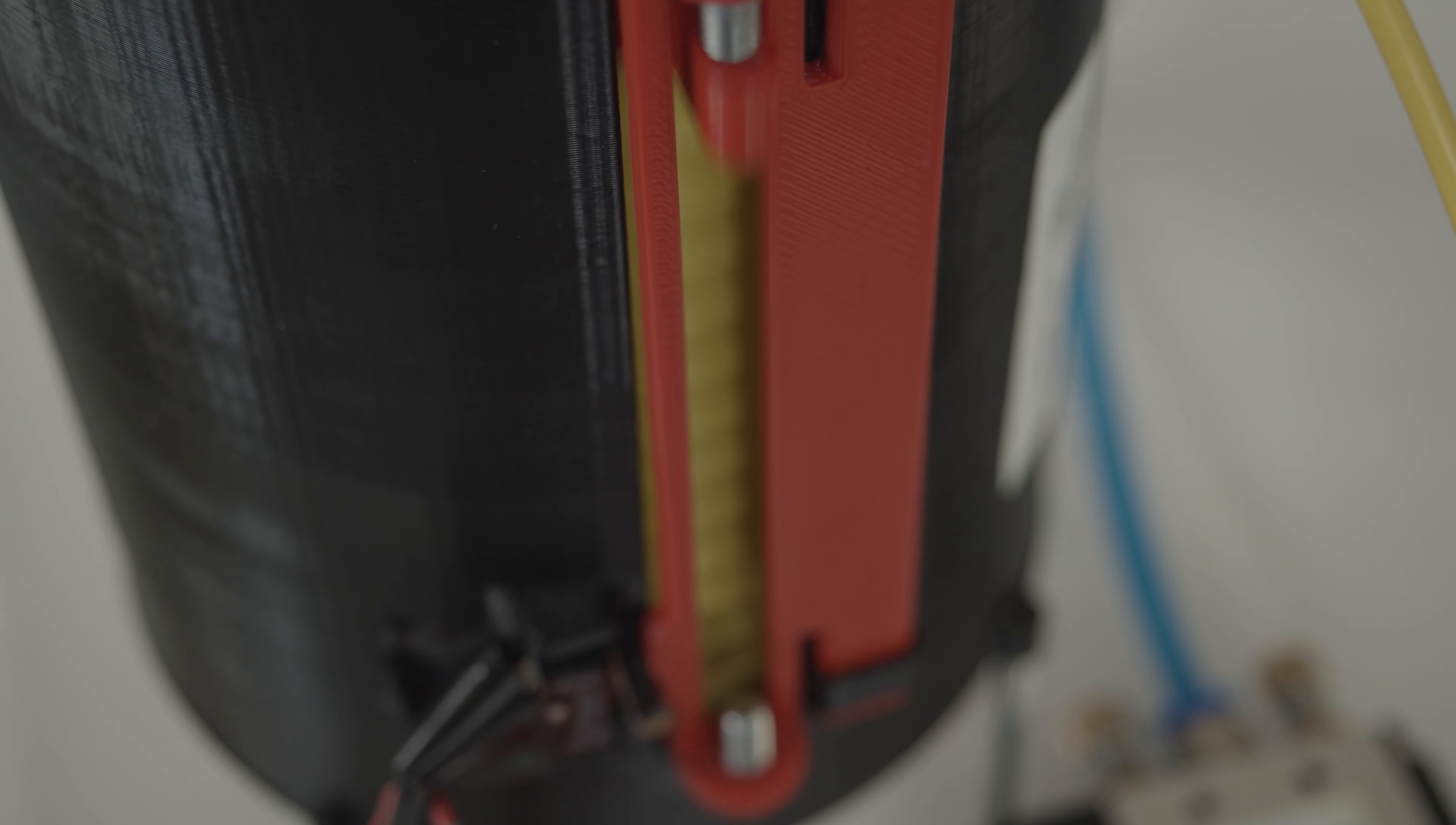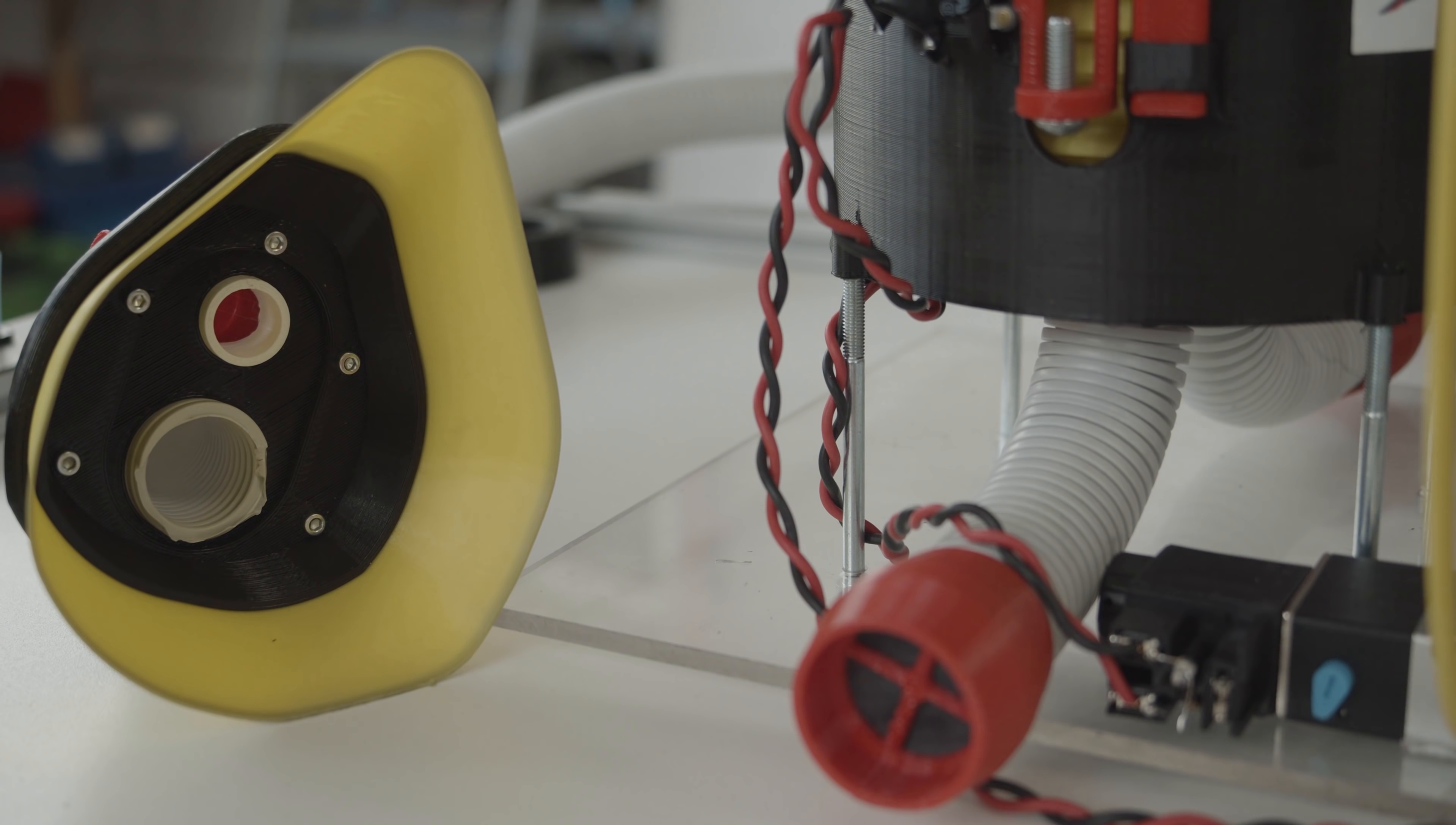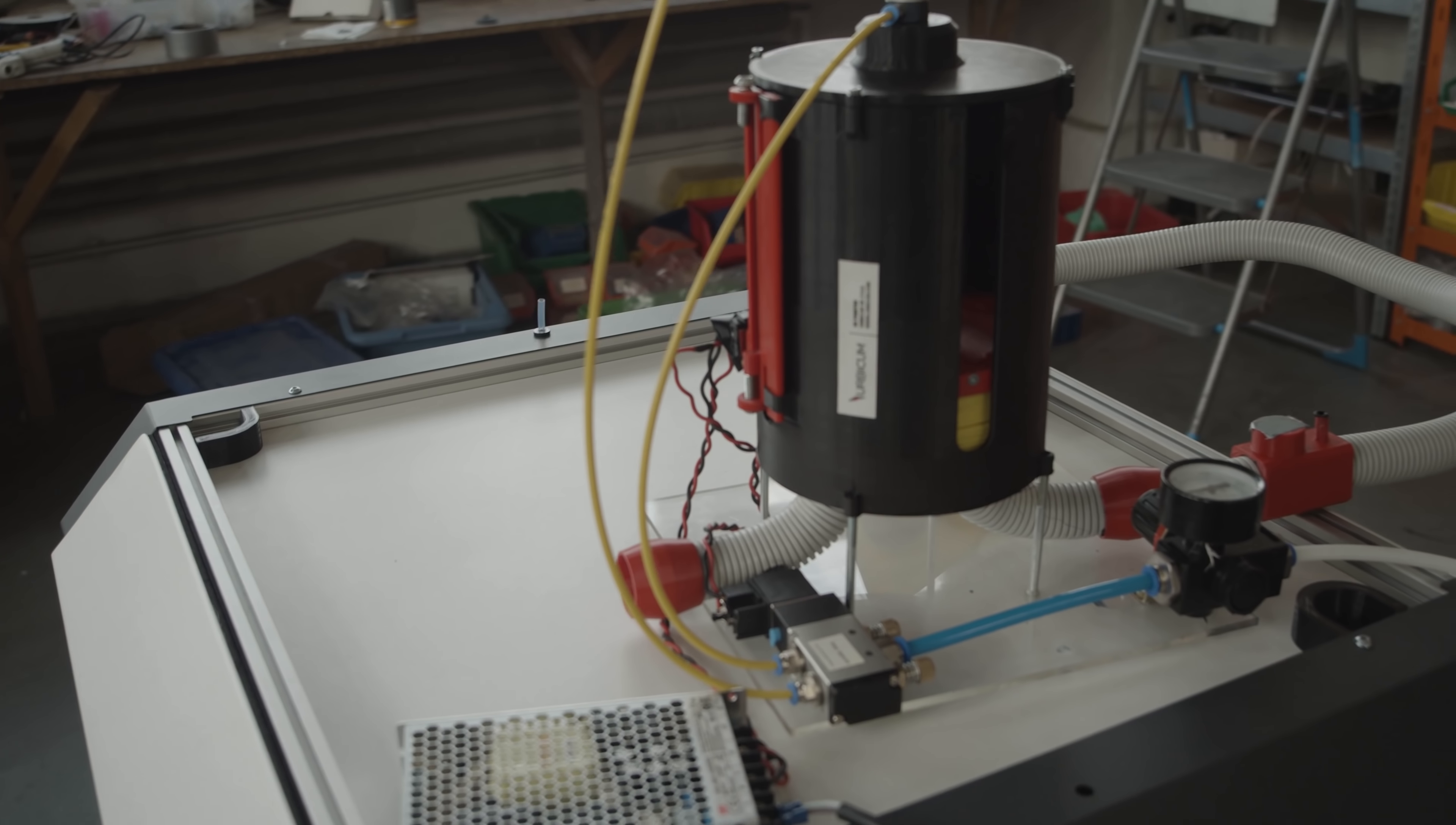If you have a car, you can use the power supply for the ventilator. You can take some parts from your car and fit it into the ventilator and that will work. So it's very universal.